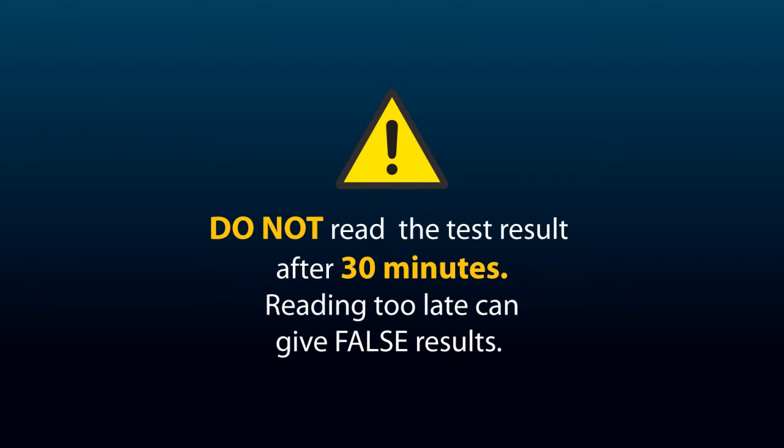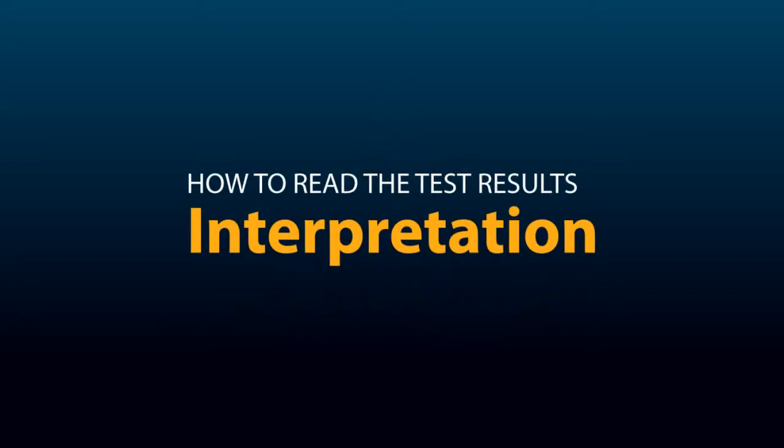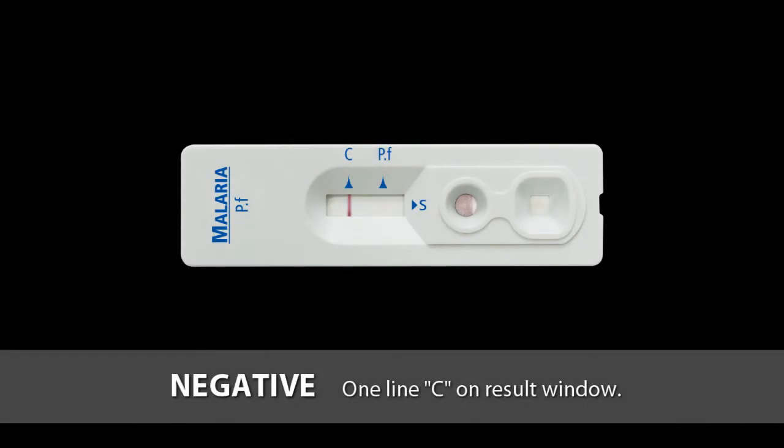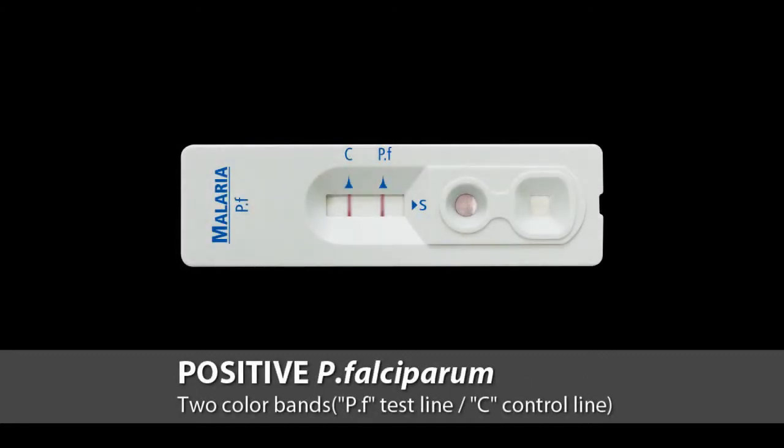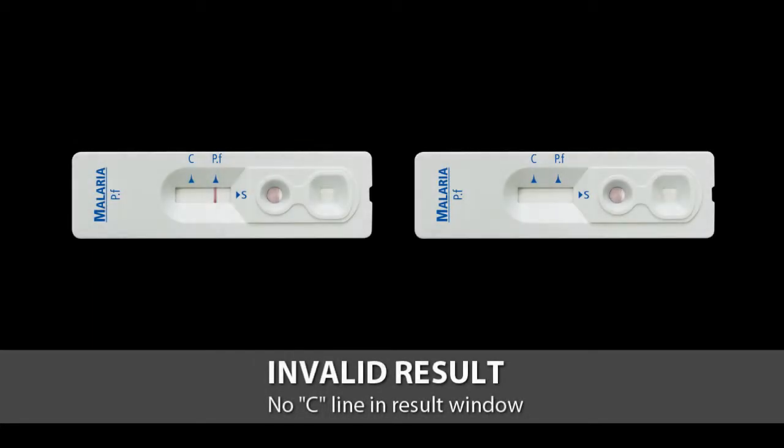Do not read the test result after 30 minutes. Reading too late can give false results. Only one line C on the result window means negative. 2 colour bands on PF and C line mean Plasmodium falciparum positive. If no line appears near the letter C, conduct the test again with a new test device and new inverted cup.